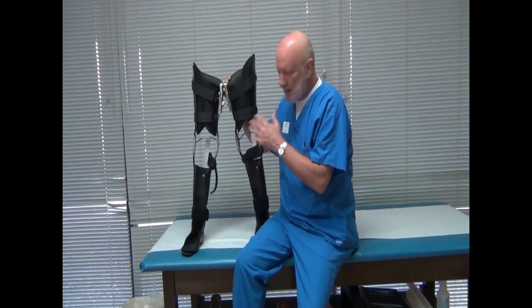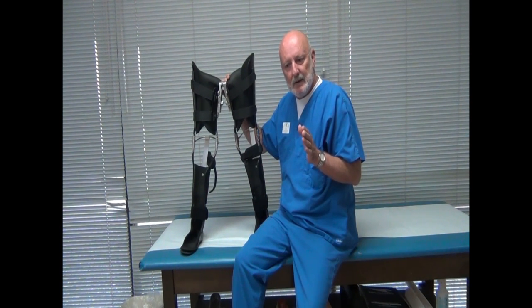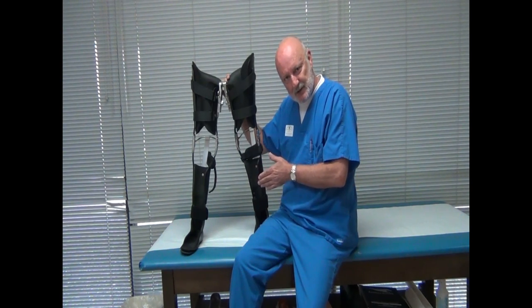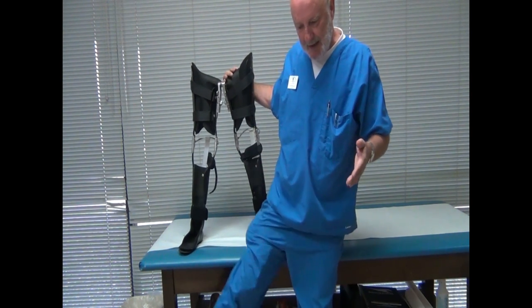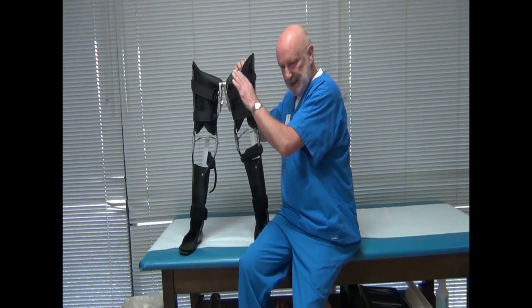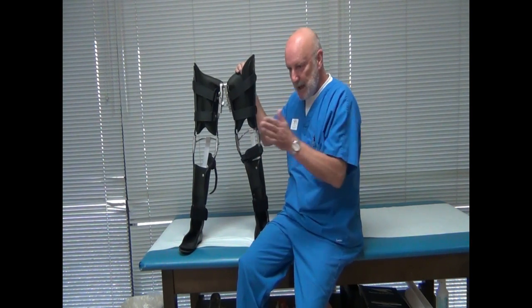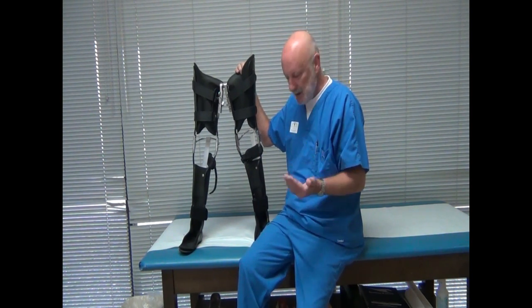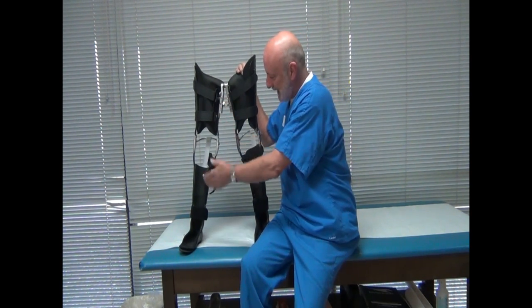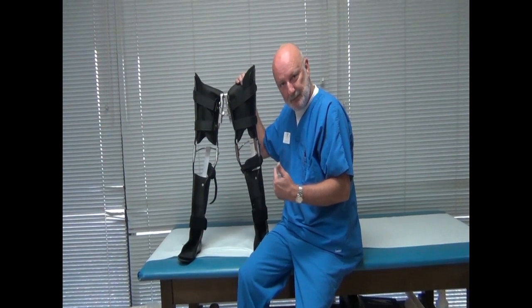When you don't have adequate hip abduction and adduction strength — meaning the muscles that move the leg both out and in — when you're walking in just leg braces, you're at risk for one leg crossing in front of the other if you don't have that strength. What the Up and About system does is maintain the abduction, preventing the leg from crossing in front of the other.